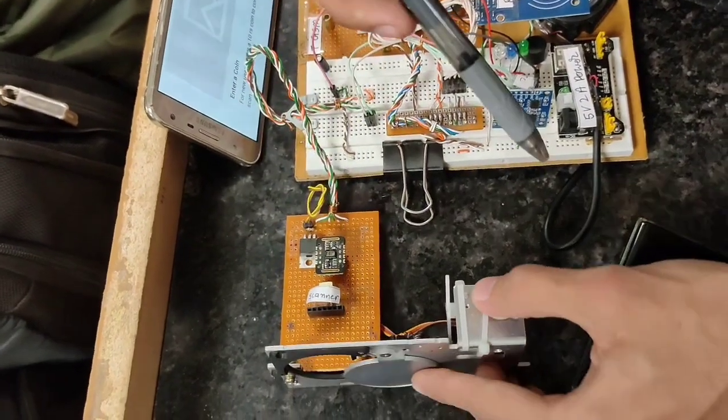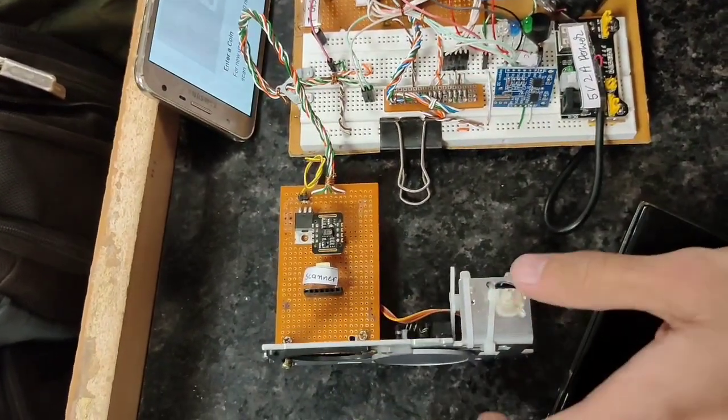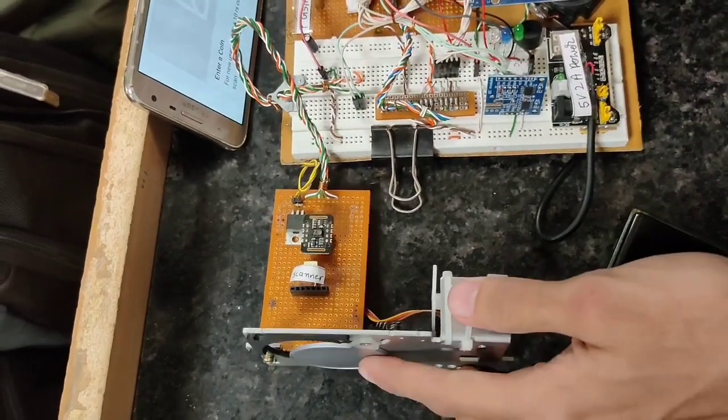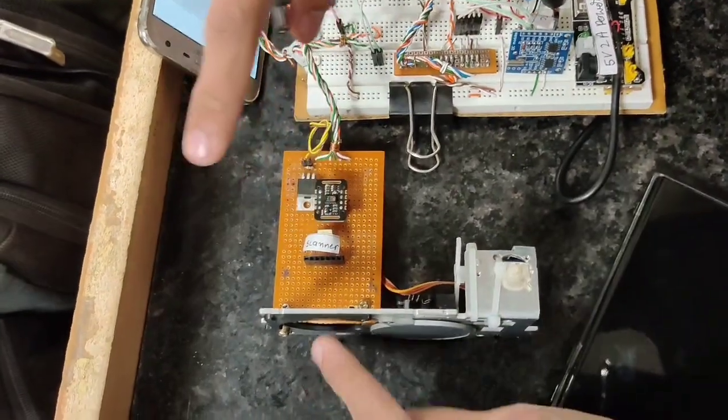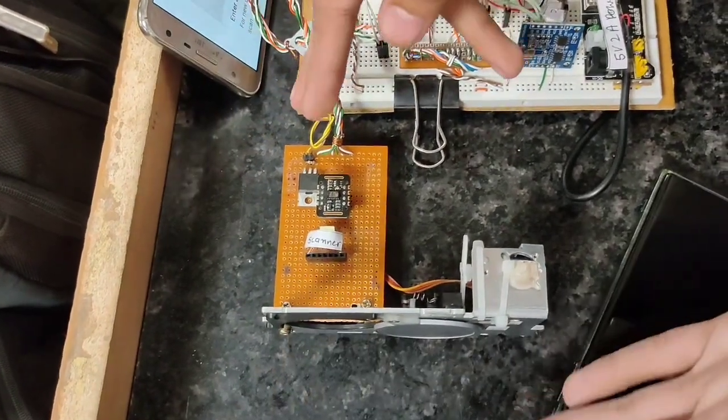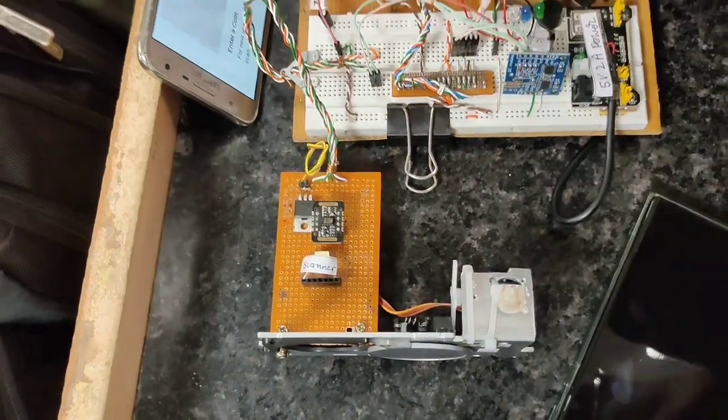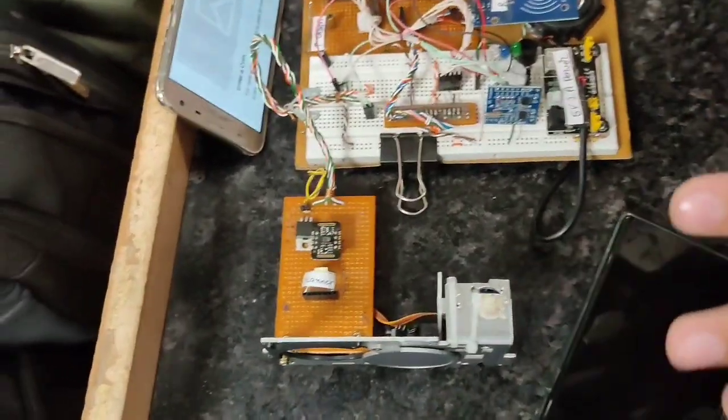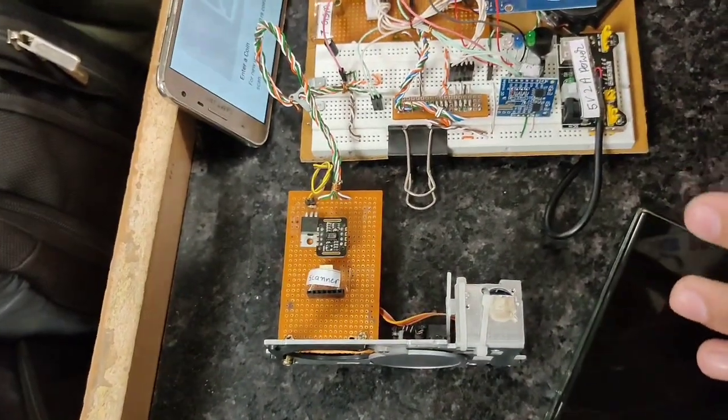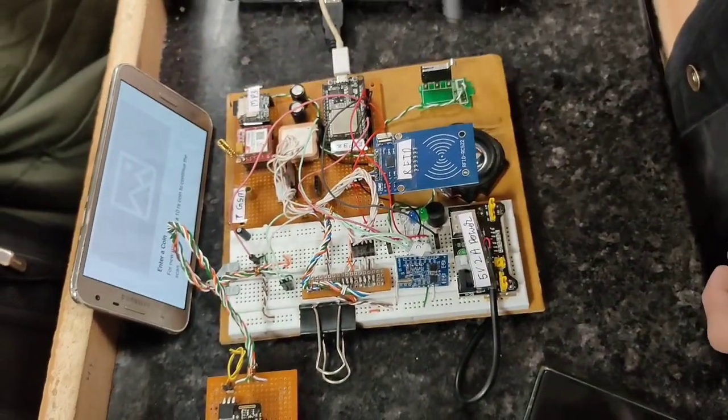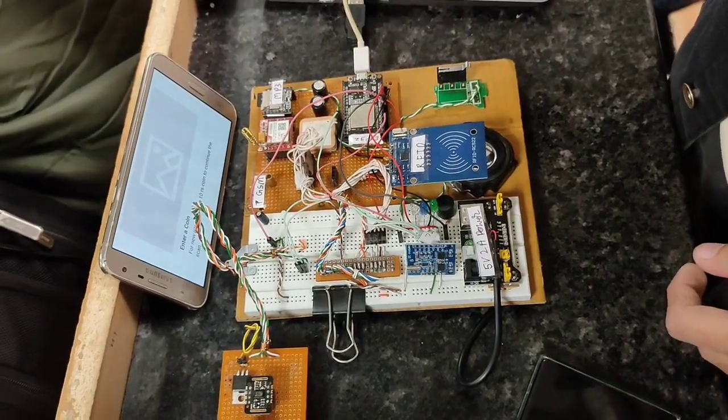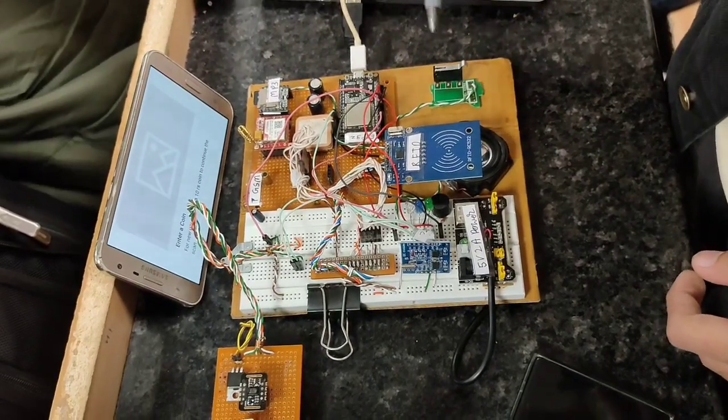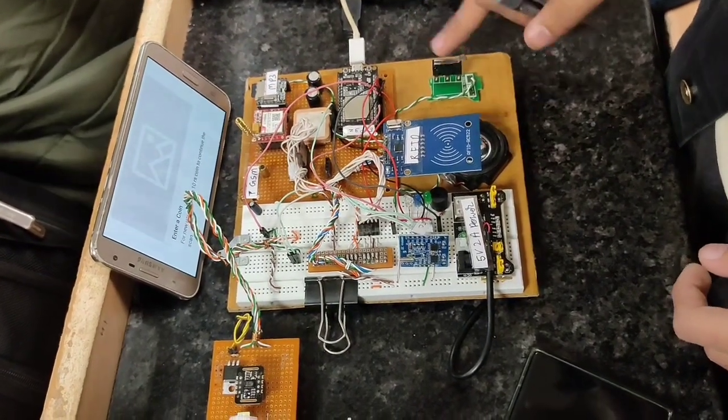Whenever the sensor is ready, it opens the door and the user places his finger inside like this and it scans. Suppose a new user came and inserted a coin. Assume this is the coin switching mechanism - when a coin is inserted, this switch is triggered.